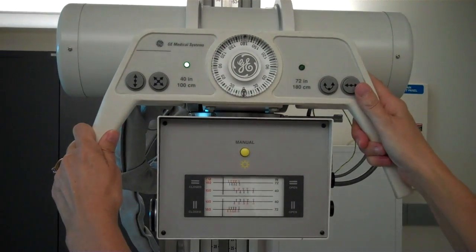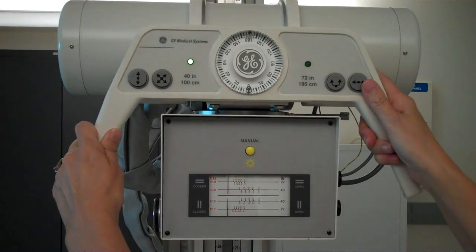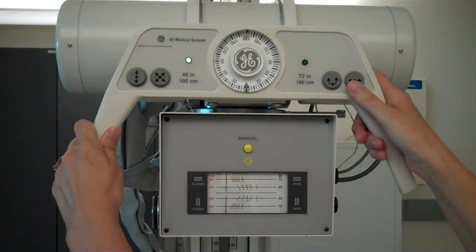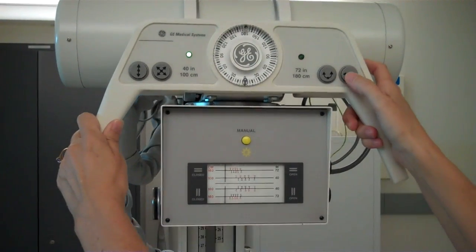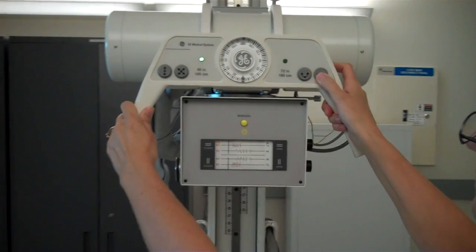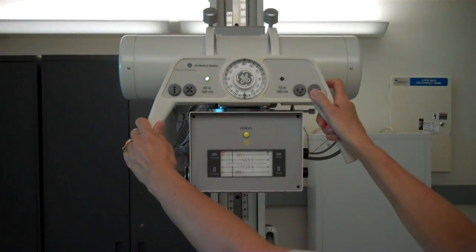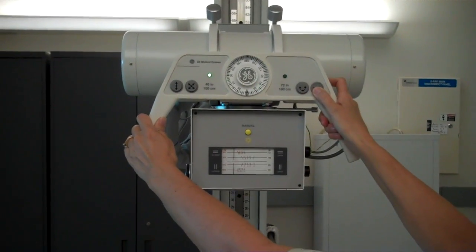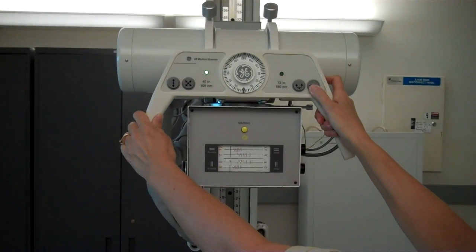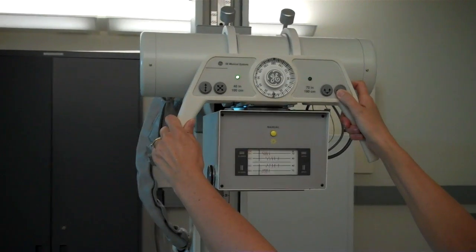The x-ray tube can be moved from the top of the table to the foot of the table by selecting the longitudinal button. It allows for easy movement towards the head of the table or towards the foot of the table.